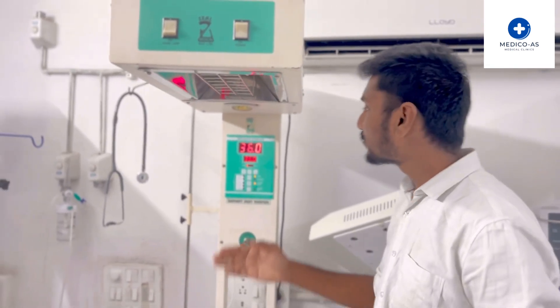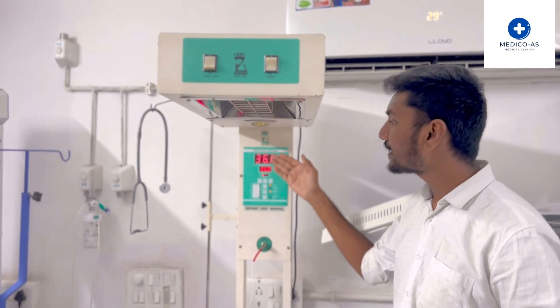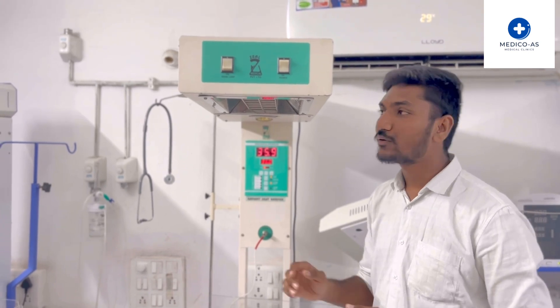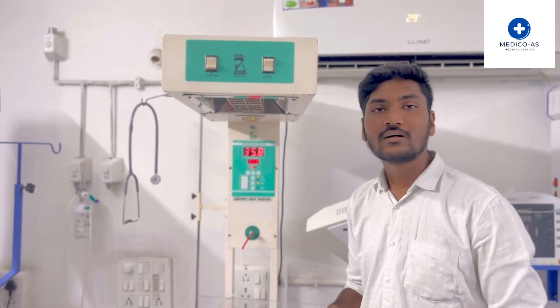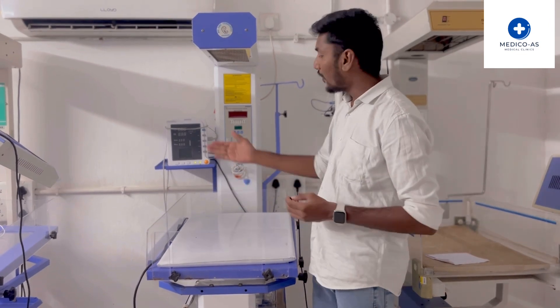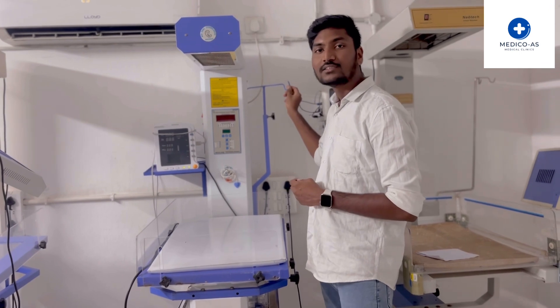When the temperature of the baby is high, you can display and monitor the baby's temperature on screen. There are four cradles which can better support the baby. The second component is the monitor, and on the right side there is an IV stand for the baby.